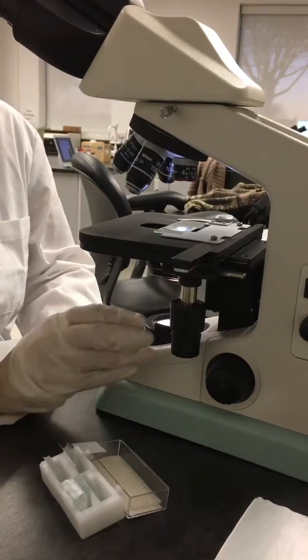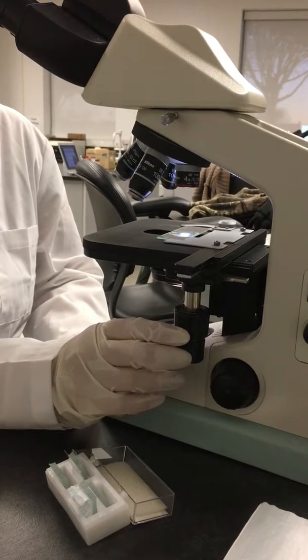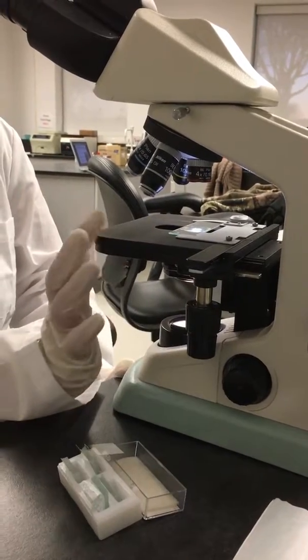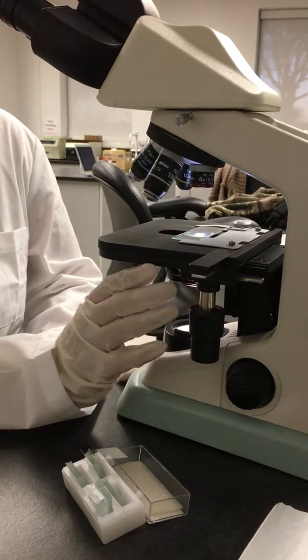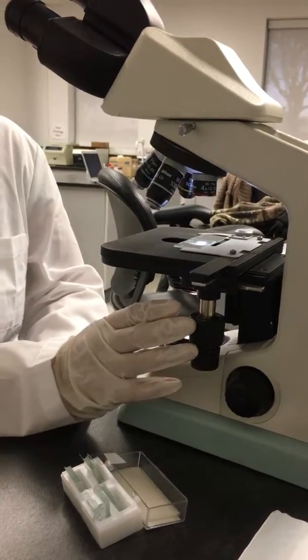In these kinds of tests with dog poop, we're looking for different types of parasites such as roundworms and hookworms. Usually it's not usual to see an actual worm. We're looking for their eggs. And so you'll start on the 4X and you'll do the snaking method to make sure you cover the whole slide. And then if you think you see something, you can move to the 10X. That's it.